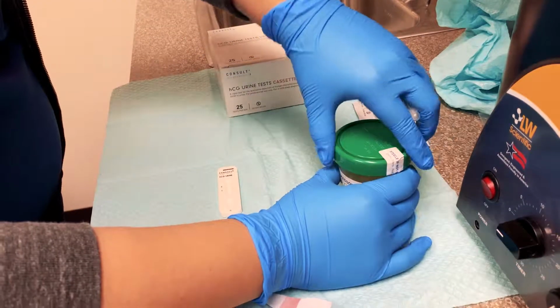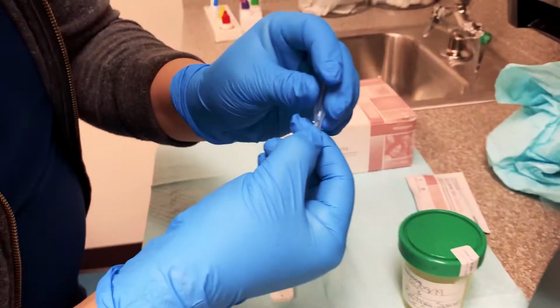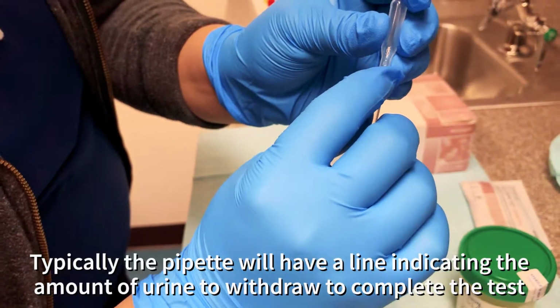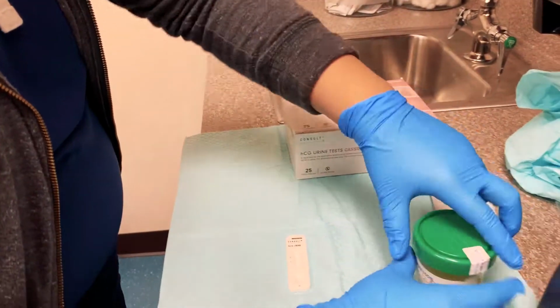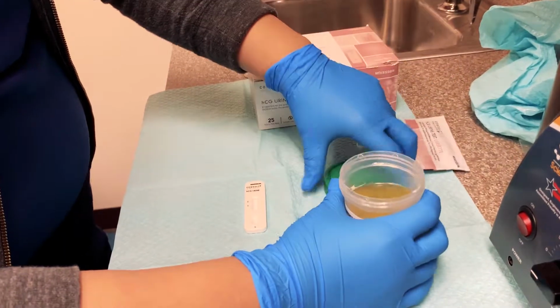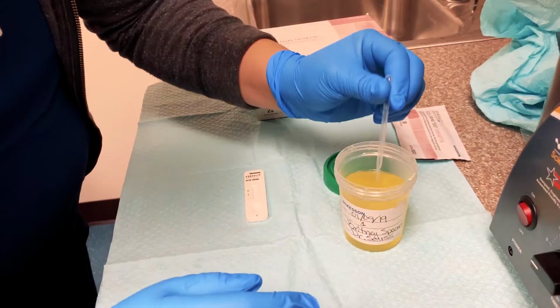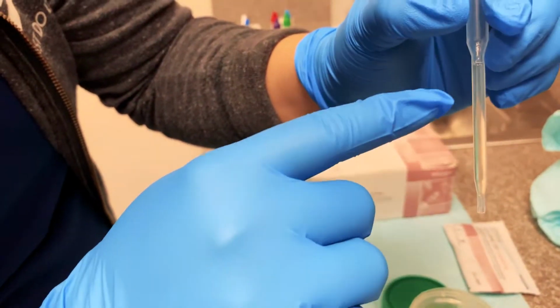This as well. So usually on pregnancy tests, it has a little line right here. Do you see it? That's how much urine it needs. Don't go over or under, or it's not going to have an accurate reading. So we're going to open this up. You see? Perfect. Right there.